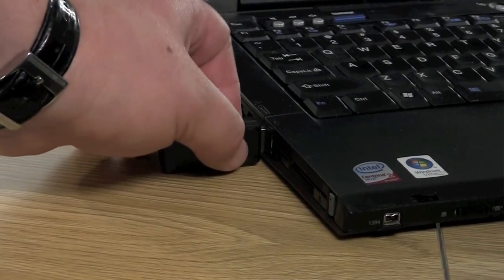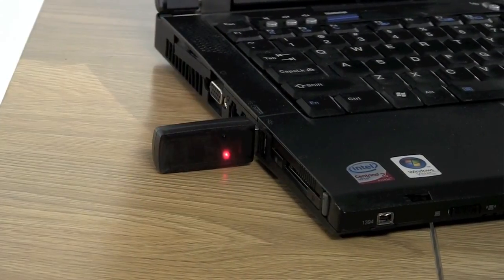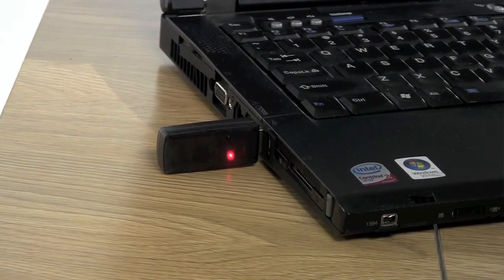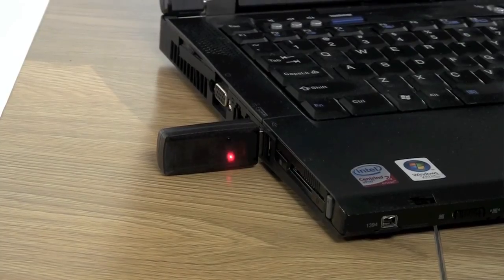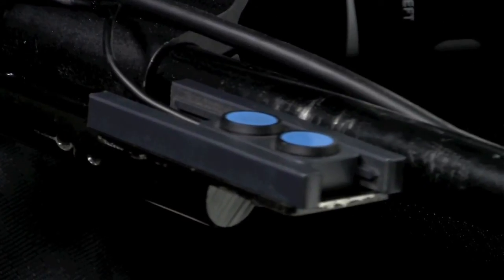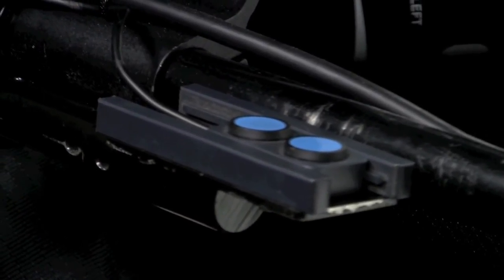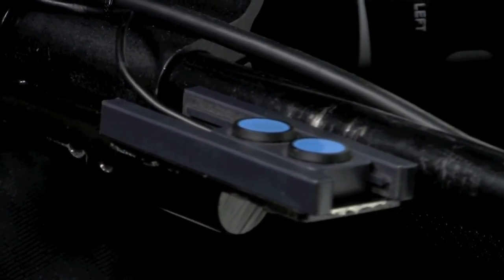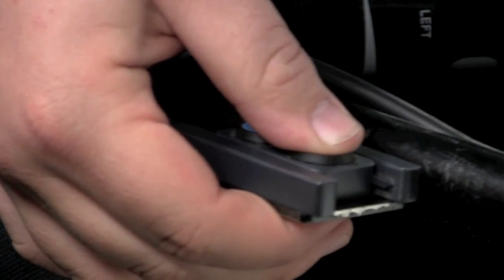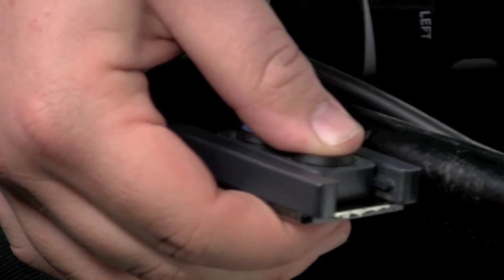Press the small button to maintain a red pulse. The final step is to hold down the left click button on your stereo switch or mono switch as you turn the wheelchair on.